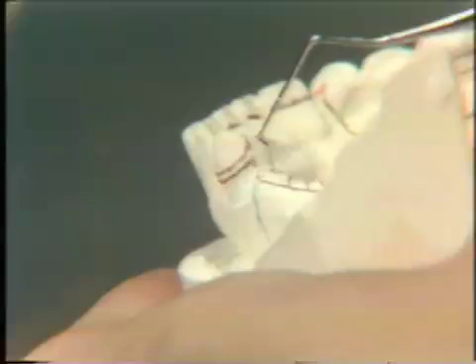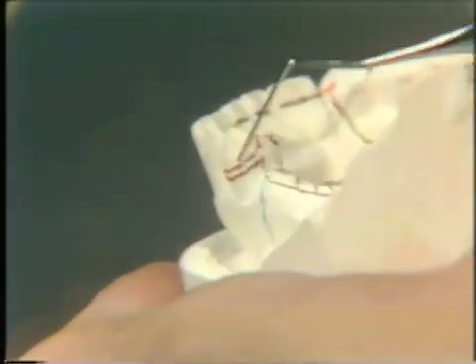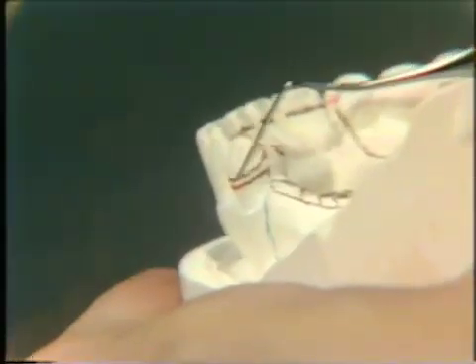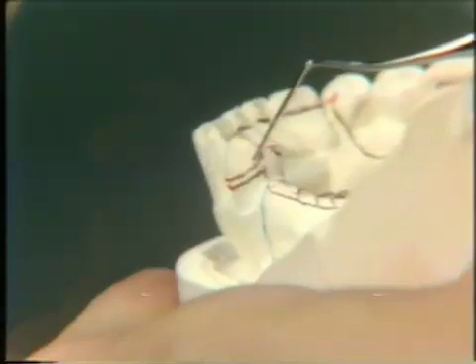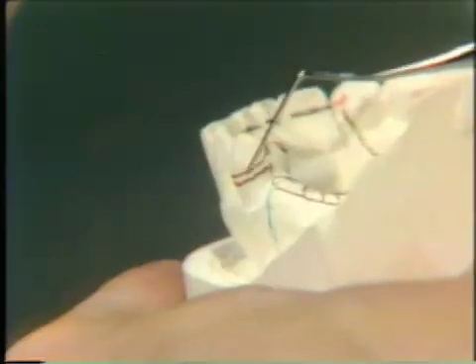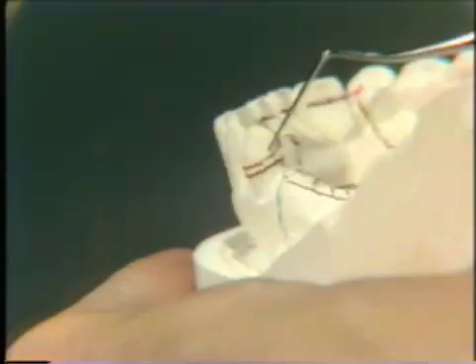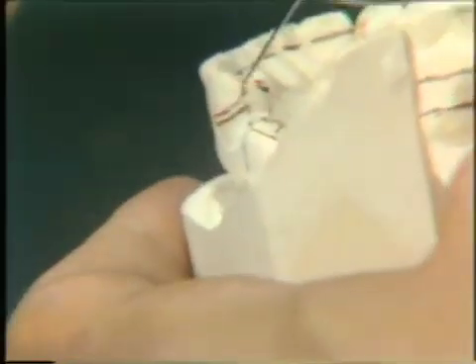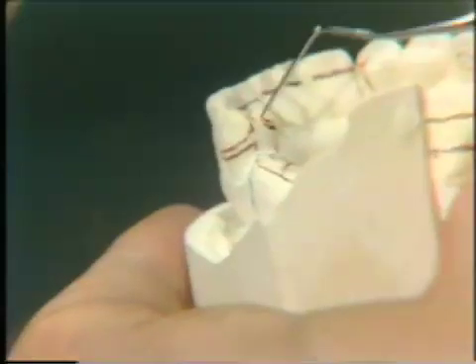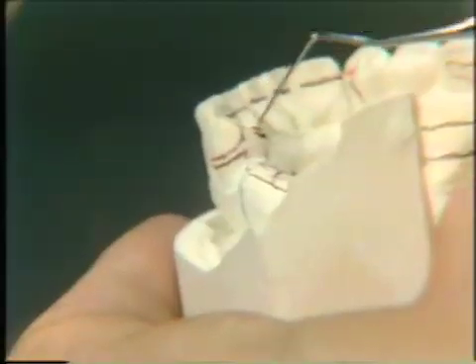The occlusal rest height is up here, so if we have to grind the occlusal rest — and in this case we are going to incorporate a retentive wrought wire for this case on the abutment tooth — we could use a cast clasp, but we feel that the wrought wire, when designed correctly, will have more of a stress-breaking action to it. When you use the wrought wire, if it comes up too high, it will weaken the rest. So we try to keep the wrought wire coming off a little lower than the occlusal rest.